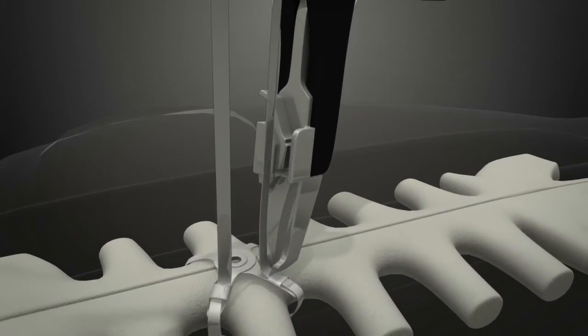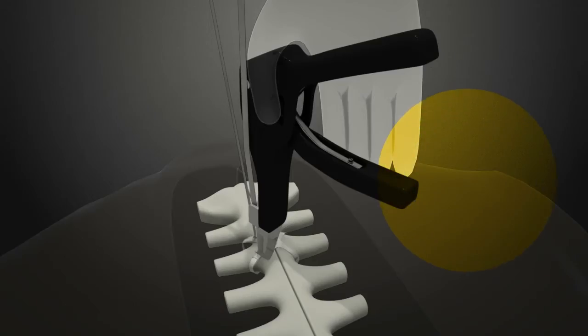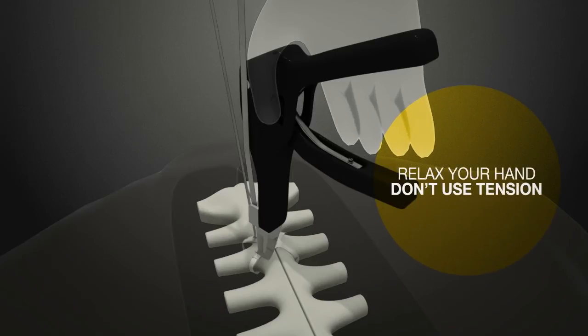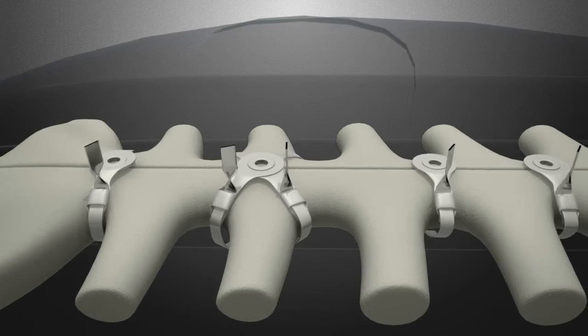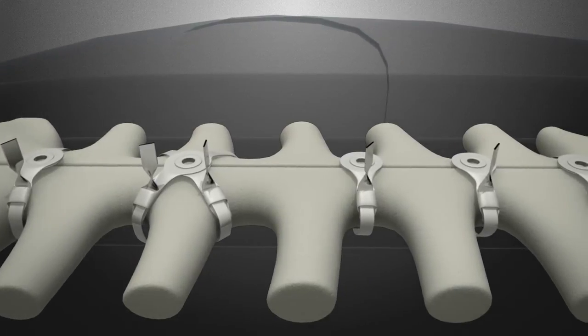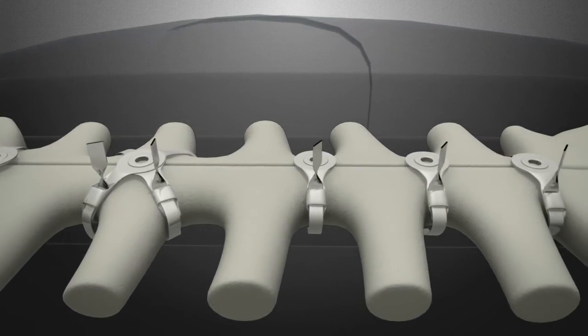The tool is re-engaged with the strap and, without any tension on the strap, the strap is turned 120 degrees. All the straps should be twisted in sequential order and cut with an 8 millimeter to 1 centimeter tail.